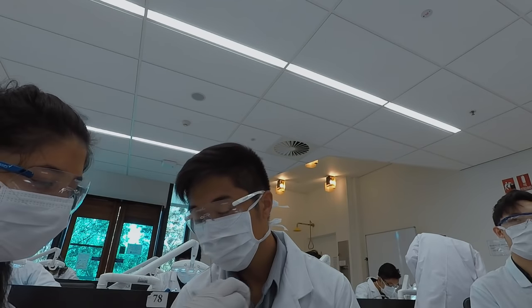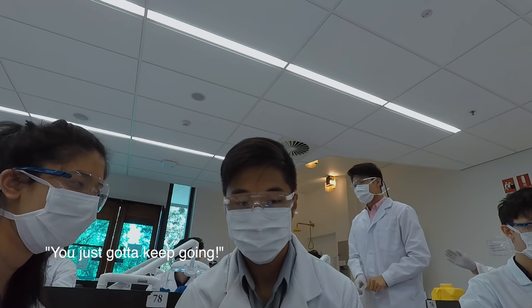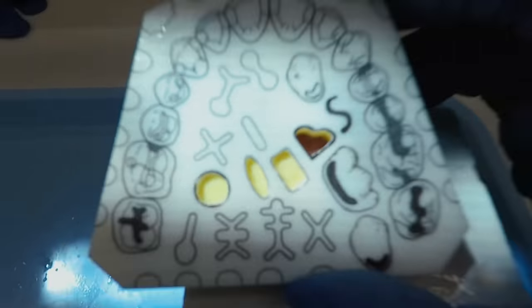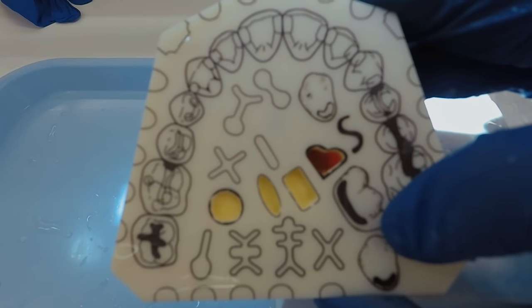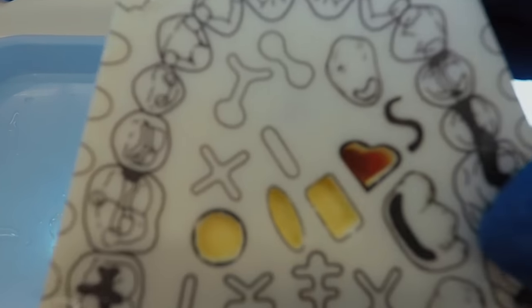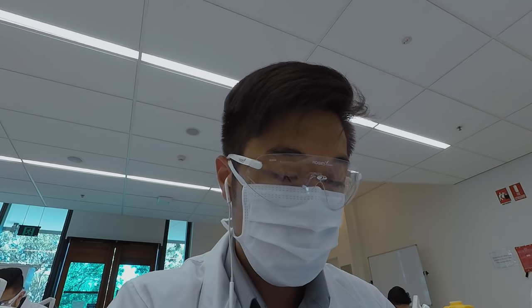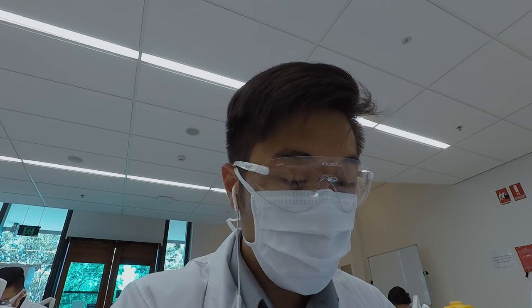You've just got to keep going — I kept making stuff and just moved on. Alright guys, so this is my final product. Obviously I'm not proud of it — you can see I over-drilled here and the floor is very jagged. I'm just going to get this one assessed by my supervisor, learn from what I did wrong, and hopefully move on.